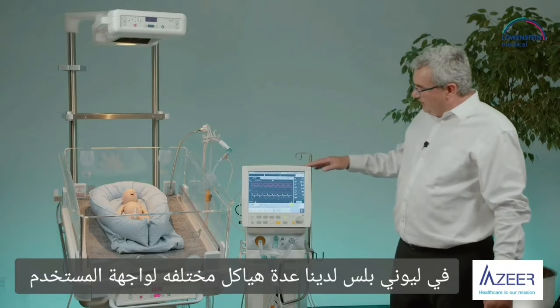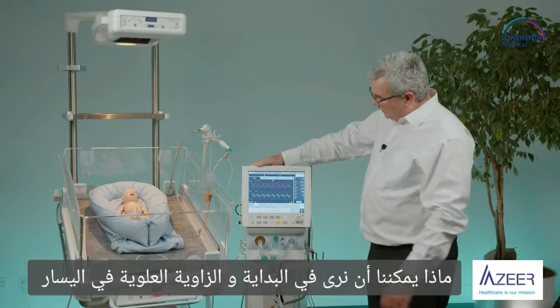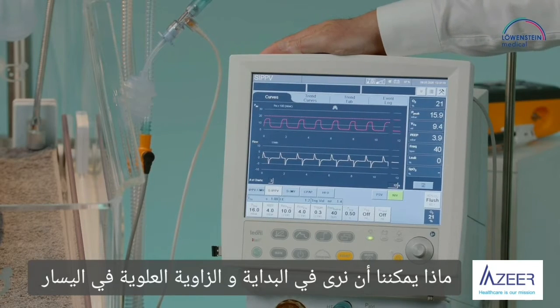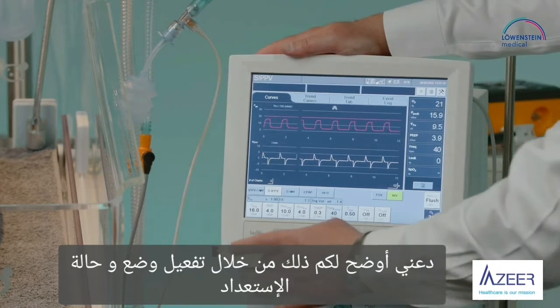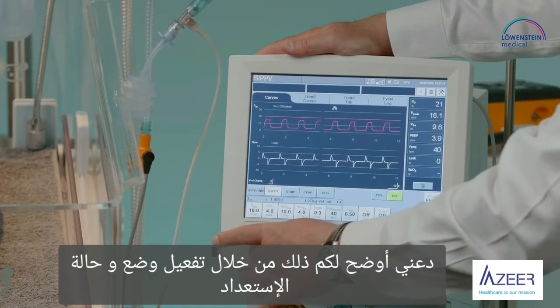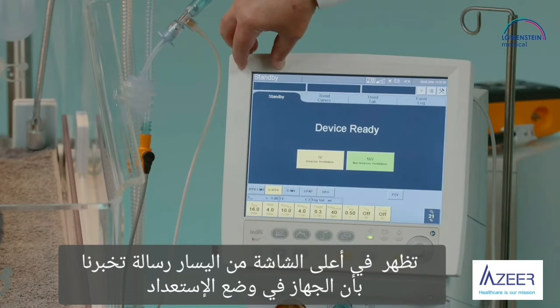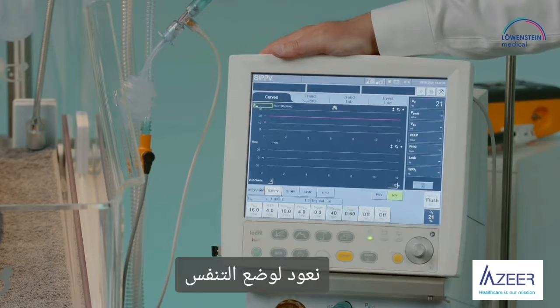On Leoni Plus, we have different structures on the user interface. What we can see in the beginning, in the upper left corner, is always the status of the system. Let me show that by selecting the standby mode. And then we have the message standby. Returning into the ventilation.